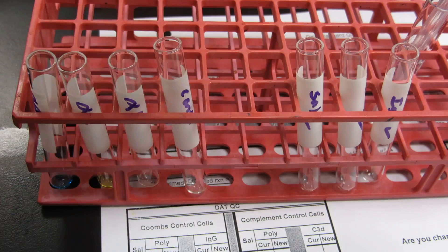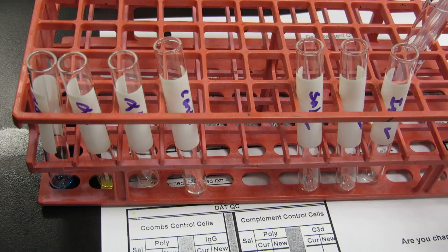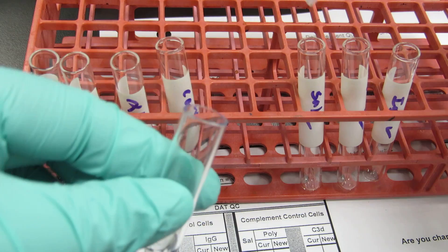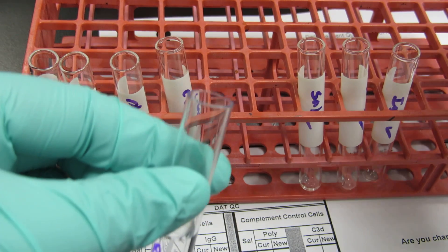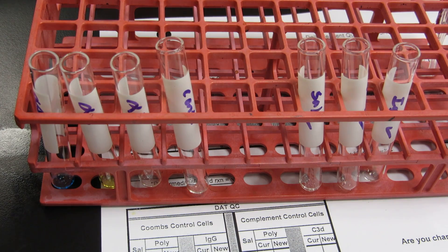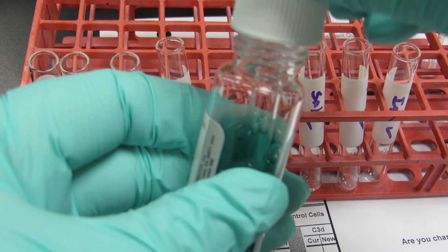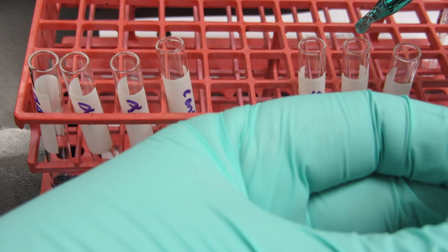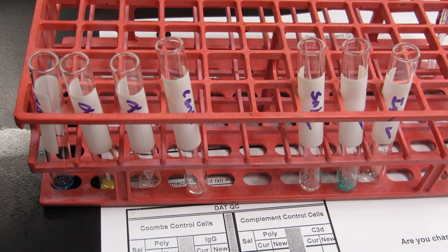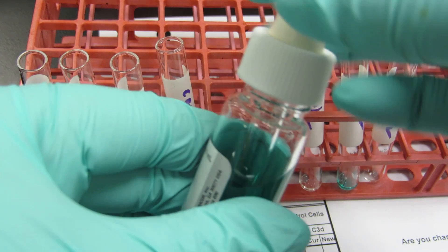Now for the other side of my tubes, I need my saline control — I squirted some saline in, two drops, because we always use two drops in our DAT procedure. Our poly — we use two drops in our DAT procedure — so I'll take my poly and put two drops. And finally I'll take my monospecific IgG and put two drops.